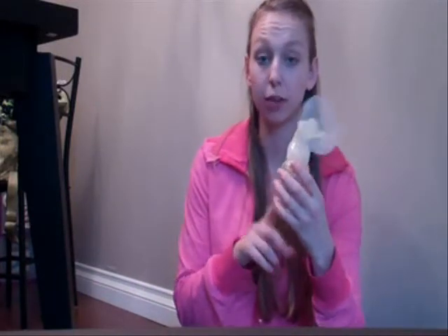I don't have too many cons about this. I love the bottles — Jax likes the bottles, so that's a plus. The size is fine. To clean, very easy.